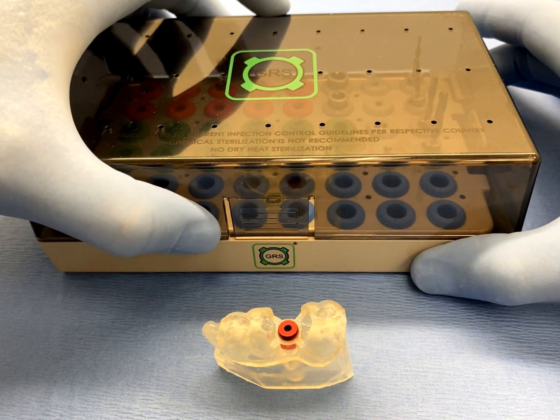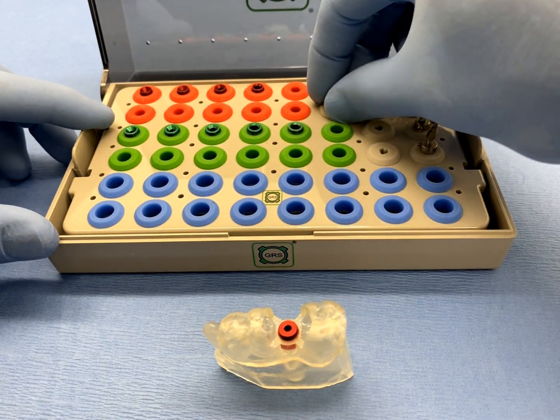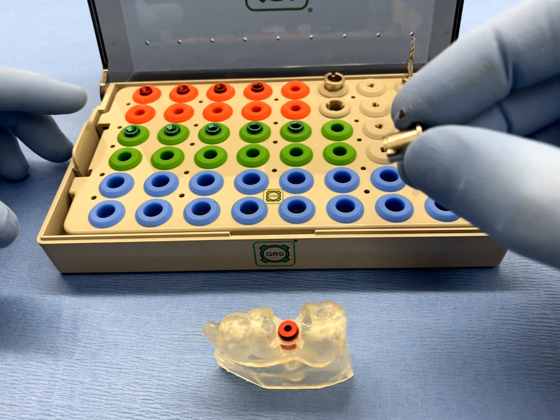Once the fit and function of the GRS surgical guide has been confirmed, it is time to set all drill stops of the surgical drill sequence.